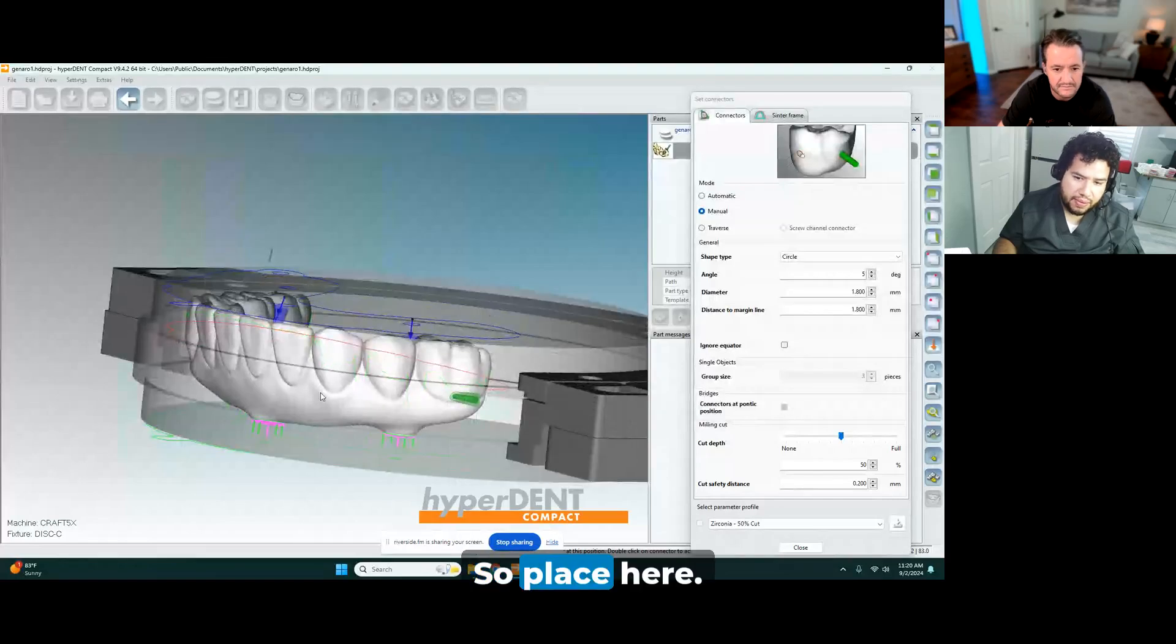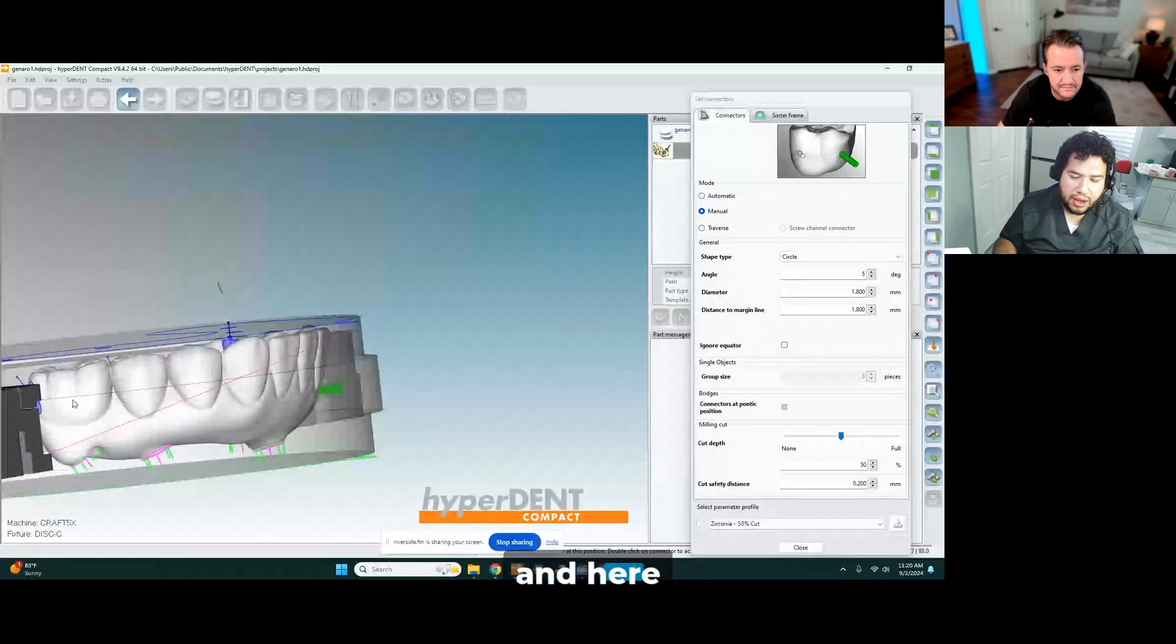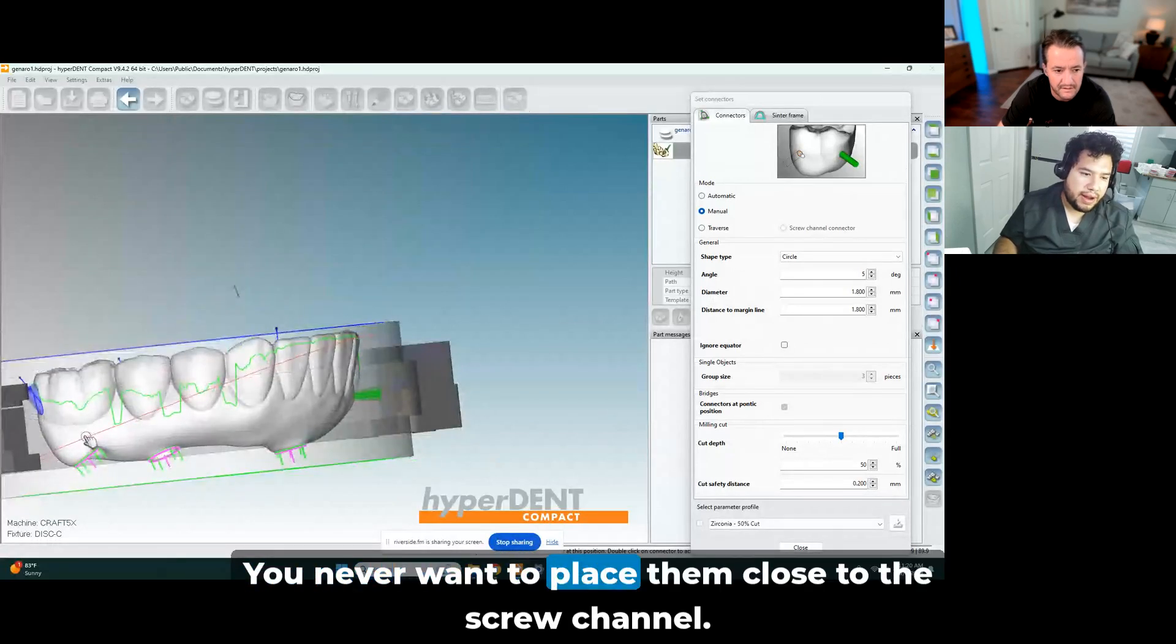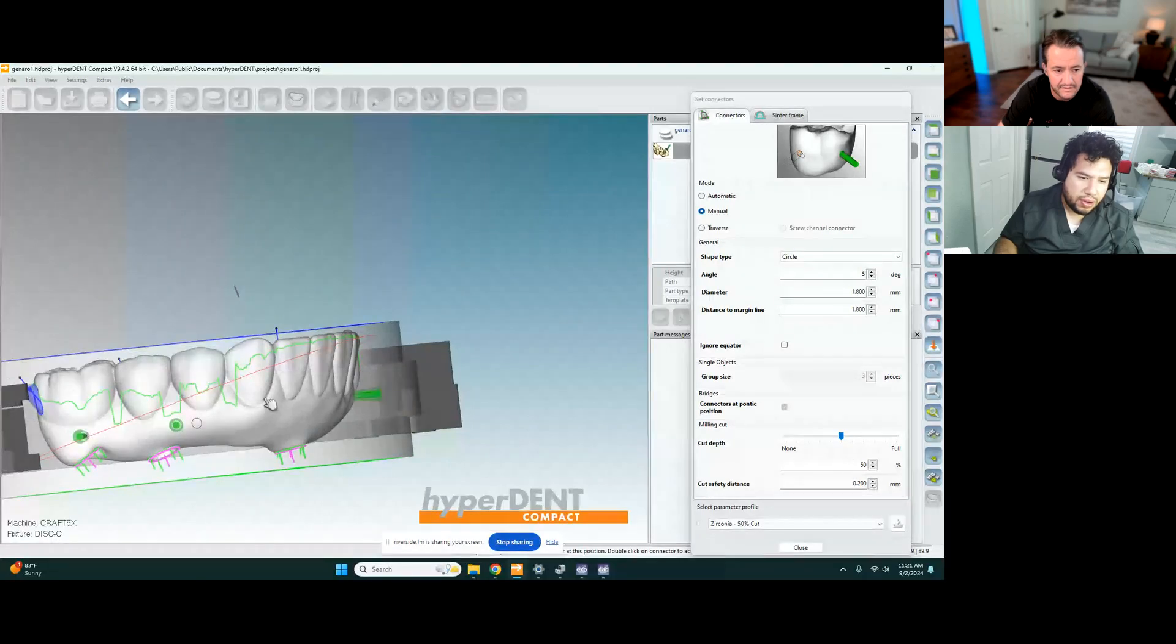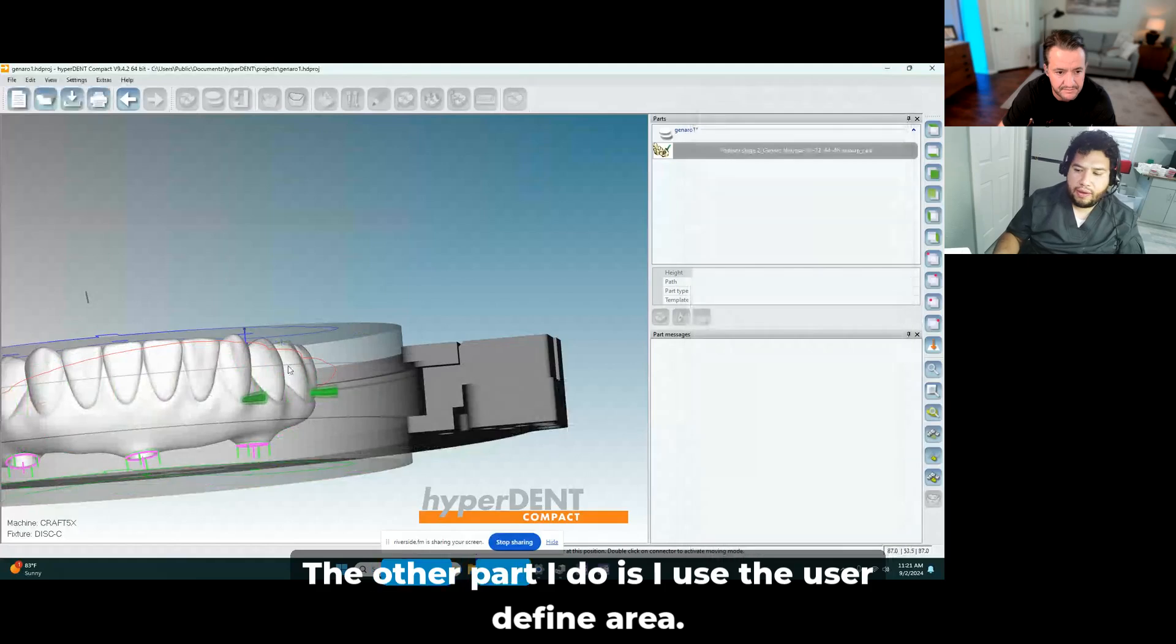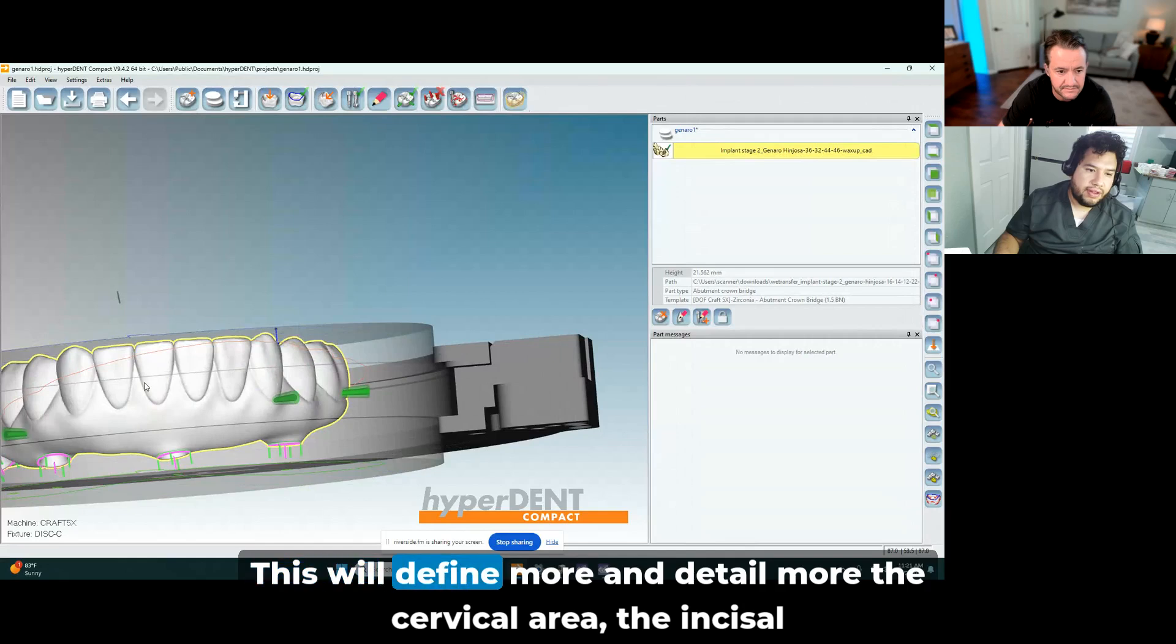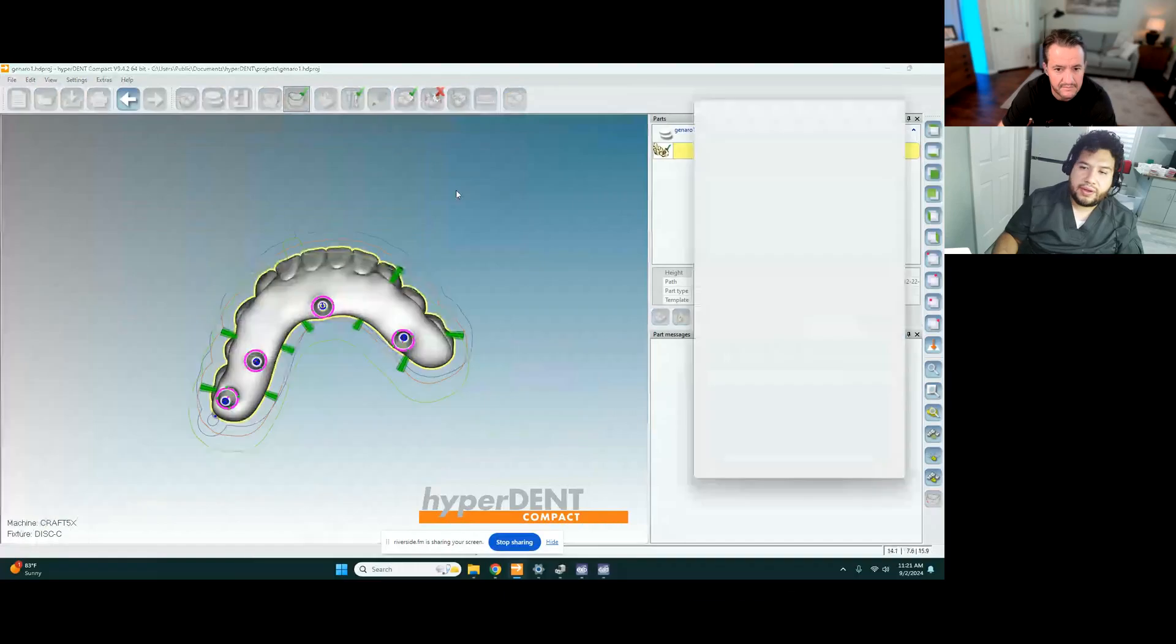So I place here. Here. You never want to place them close to the screw channel. So keep them away from the screw channel. The other part I do is I use the user defined area. This will define more and detail more the cervical area, the incisor.